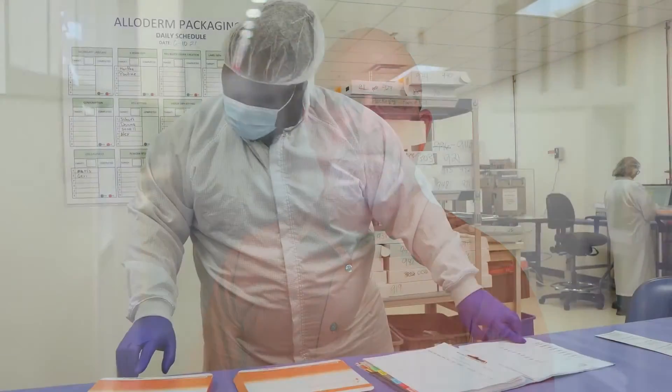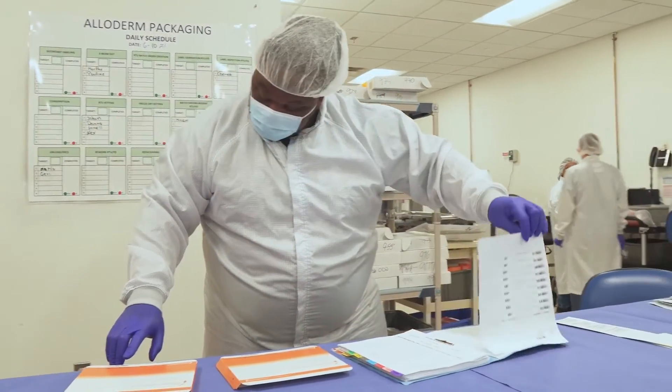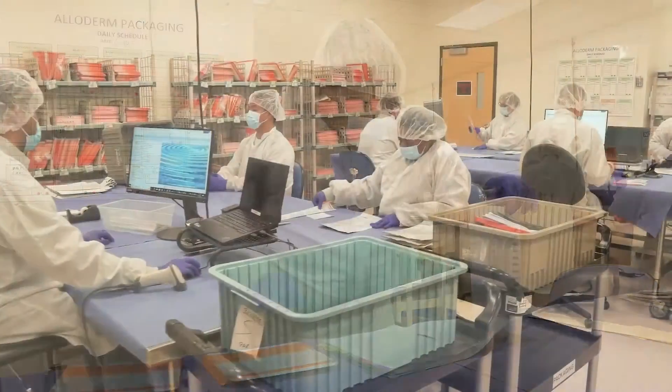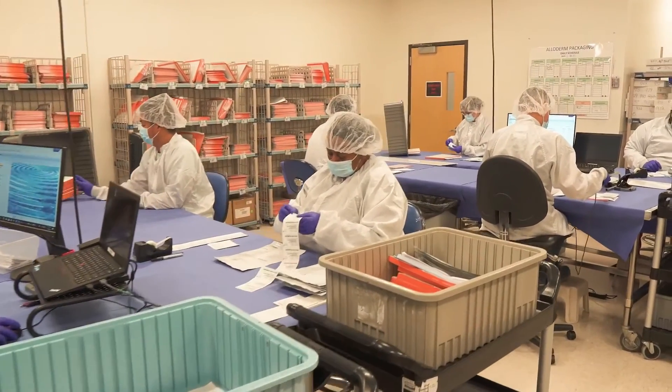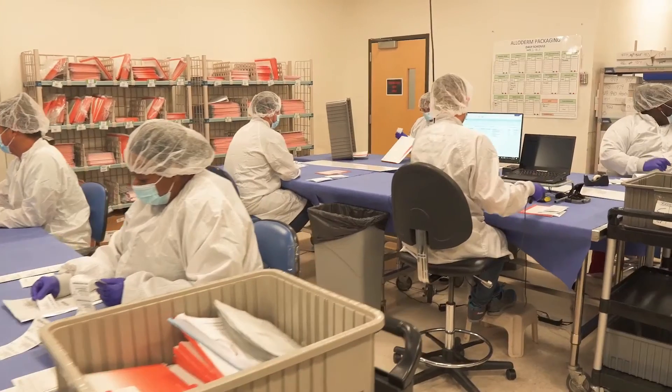Using e-beam radiation, the tissue is sterilized in a way that does not compromise the integrity of the matrix or its performance. This helps Alloderm achieve the right balance of sterility and performance. Once terminally sterilized, the tissue is packed into its final carton.